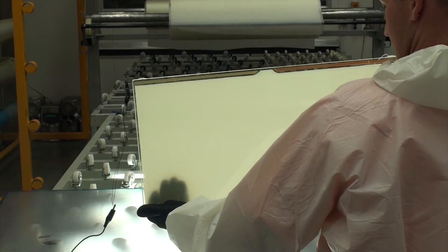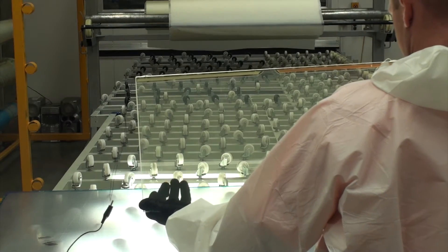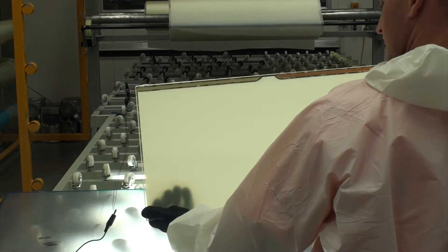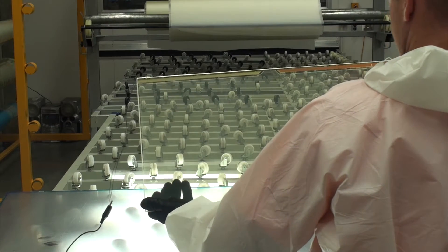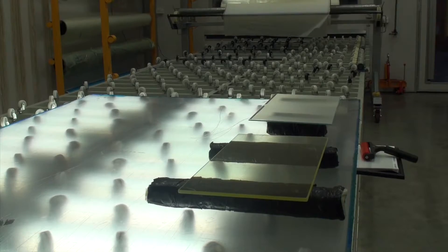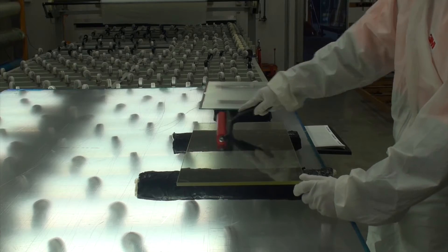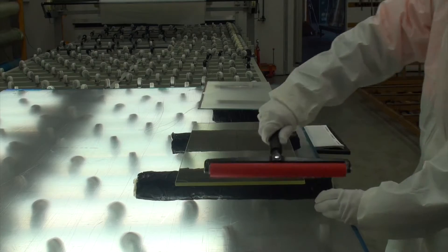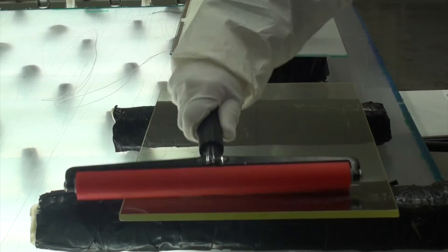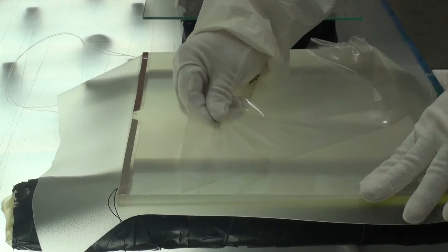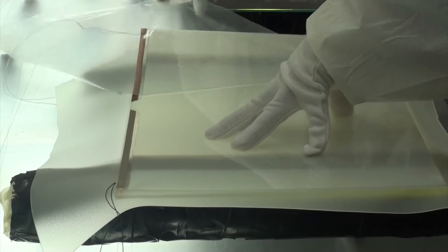Switchglass now manufactures fully bespoke lead radiation shielding switchglass which changes from opaque to completely transparent at the flick of a switch. There are no moving parts so it's totally maintenance free and replaces conventional dirt trapping mechanical blinds. This means it complies with the latest infection control requirements.